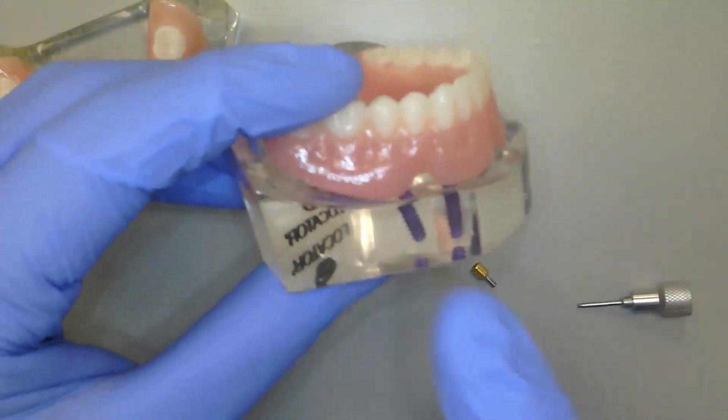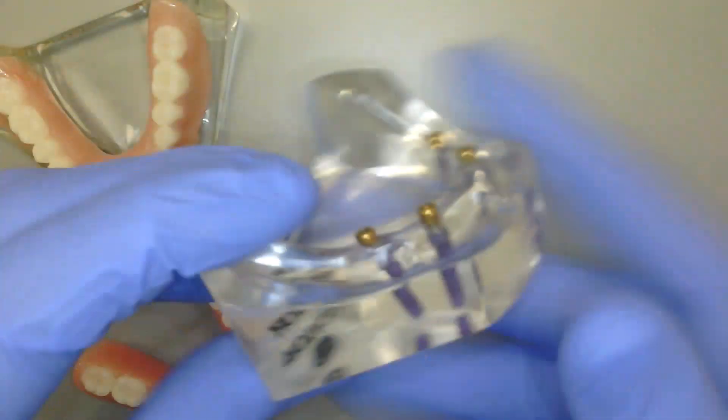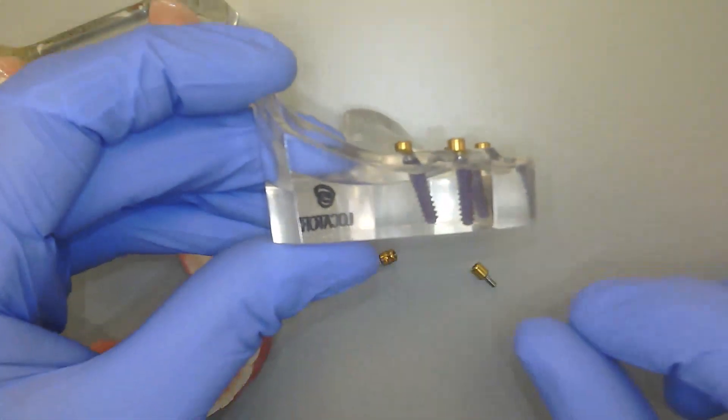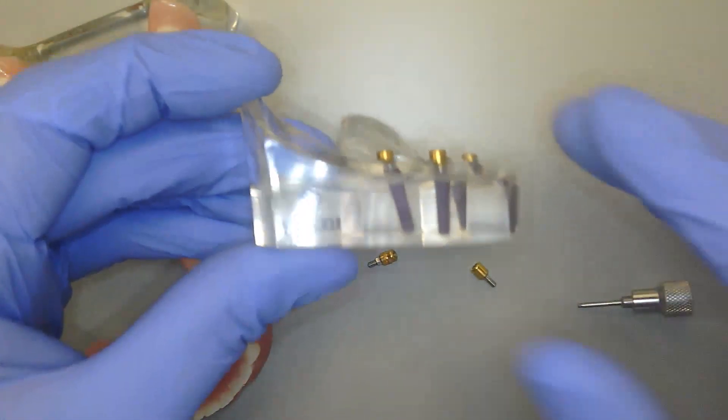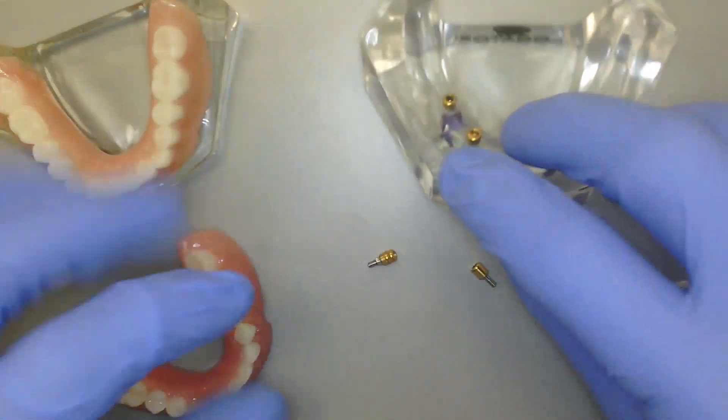However, now I can simply tilt those implants to avoid those areas where we don't have the bone or where there is some anatomy that we want to stay away from.